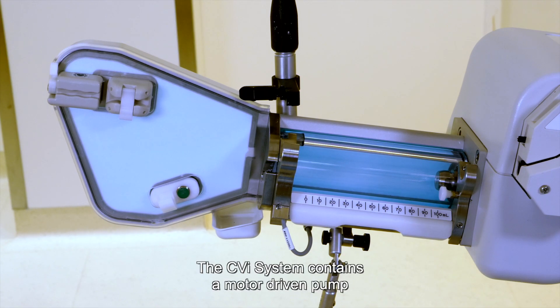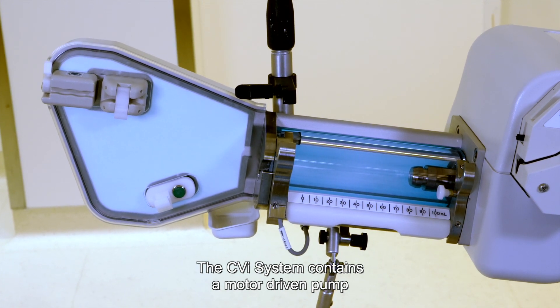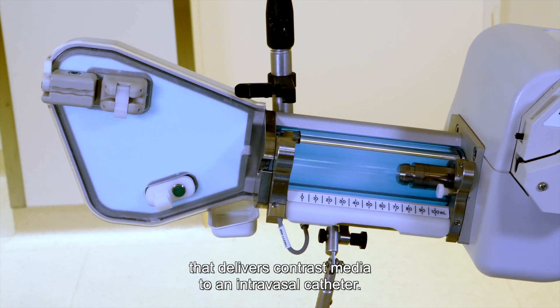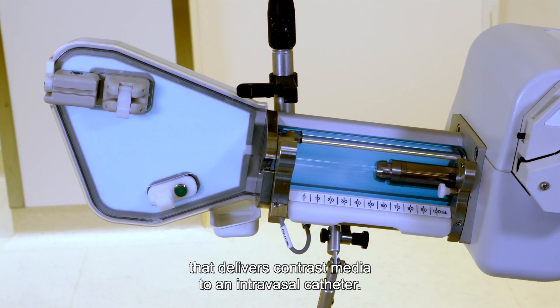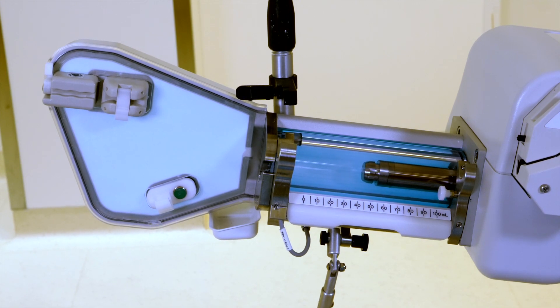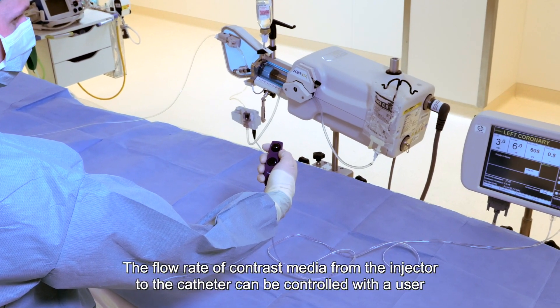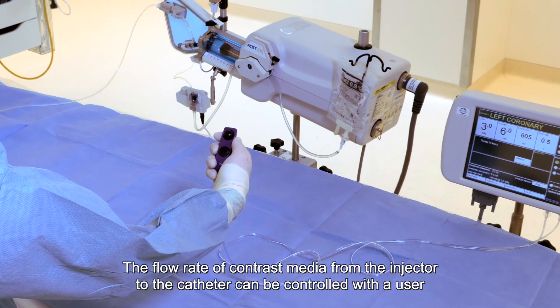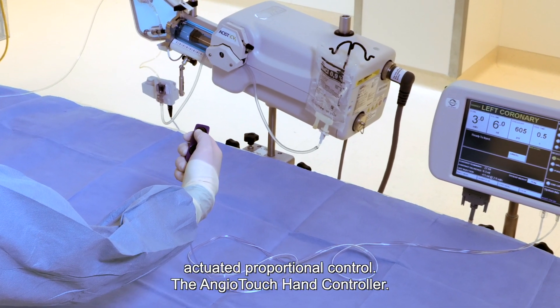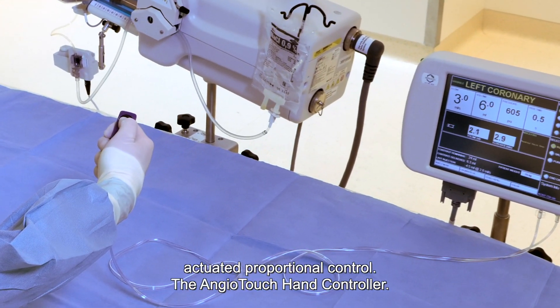The CVI system contains a motor-driven pump that delivers contrast media to an intravascular catheter. The flow rate of contrast media from the injector to the catheter can be controlled with a user-actuated proportional control — the Angio Touch hand controller.